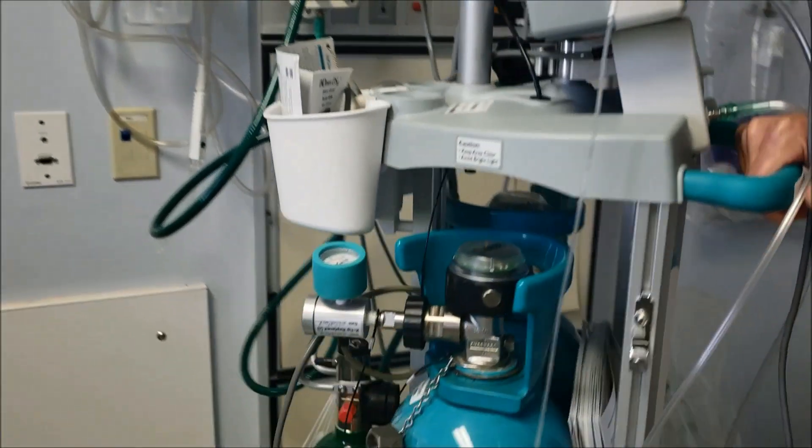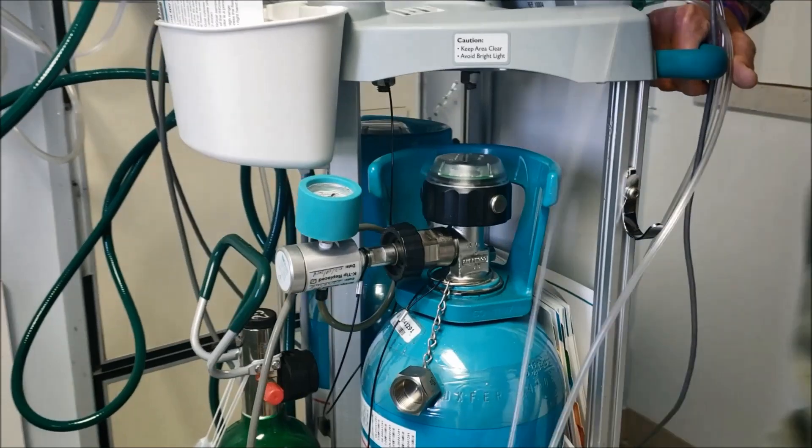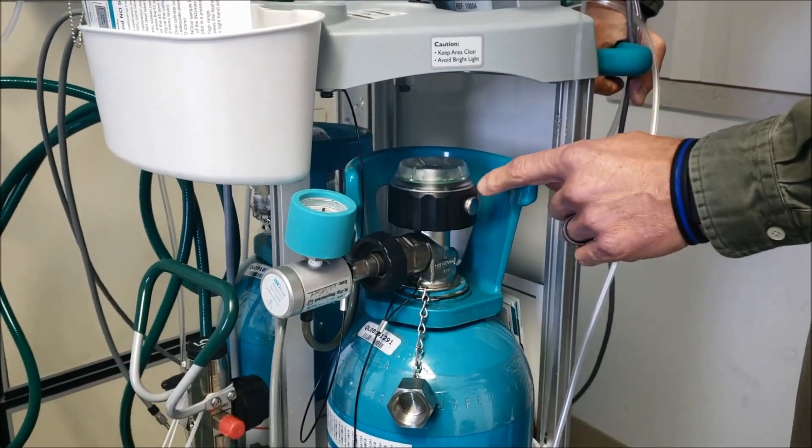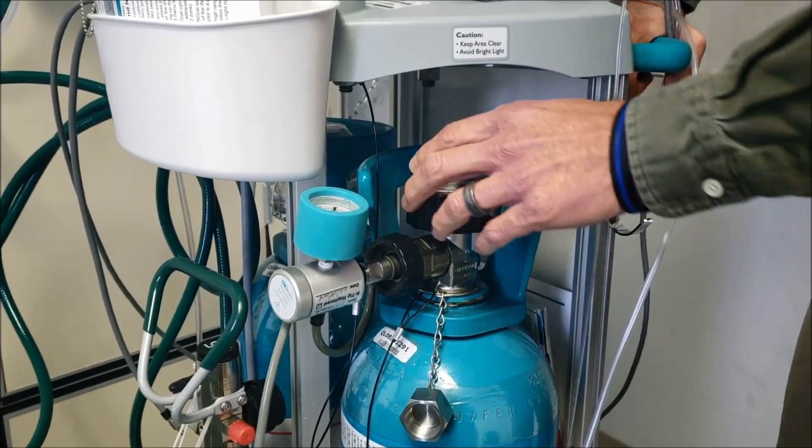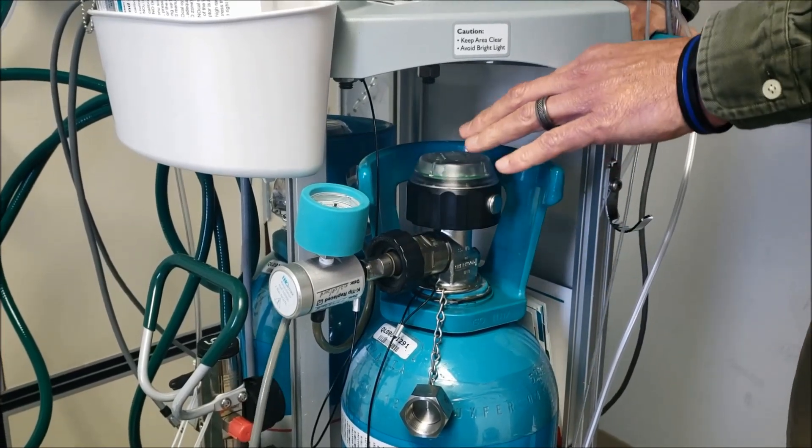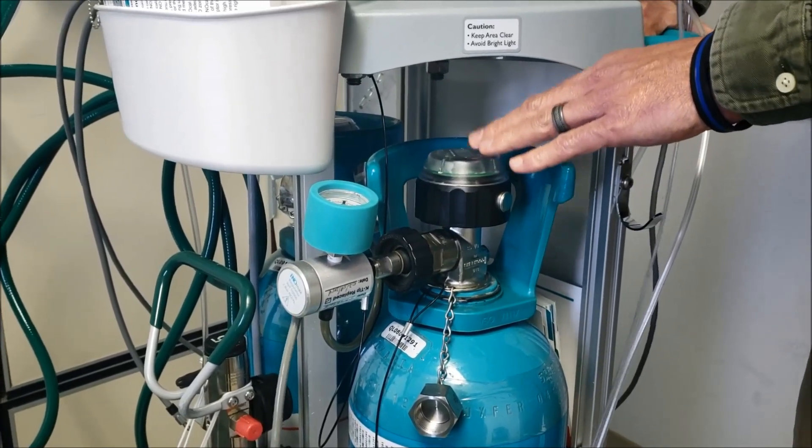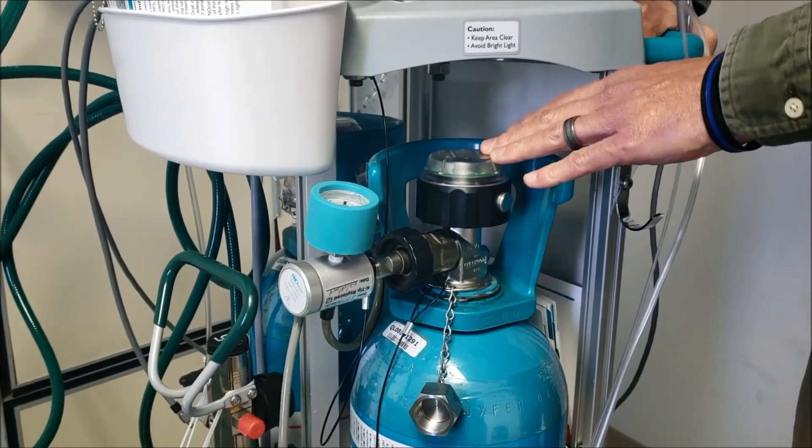When you spin the machine around, we're going to turn the tank on. The tank is just like any other tank. Remember that when we turn this tank on, whether we're running gas or not, we're being billed for every minute that this tank is on, literally every minute.